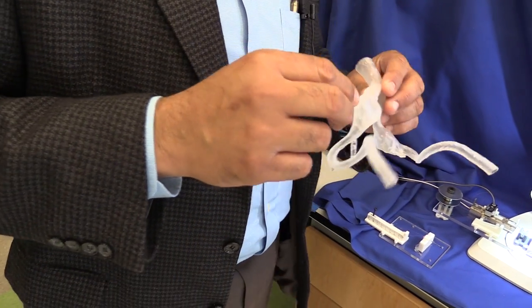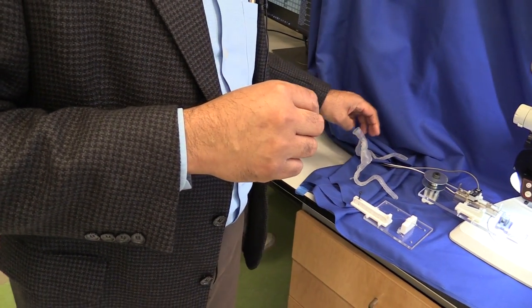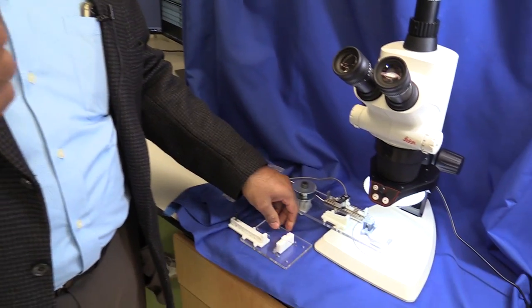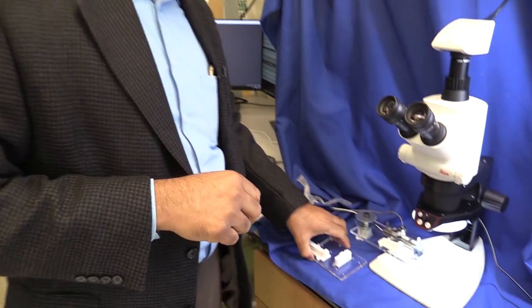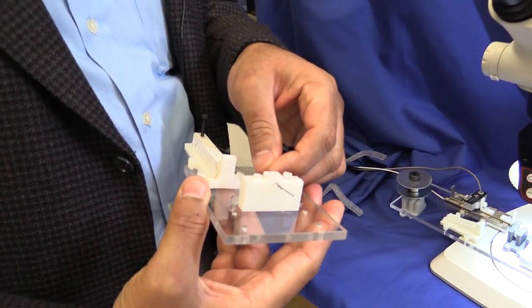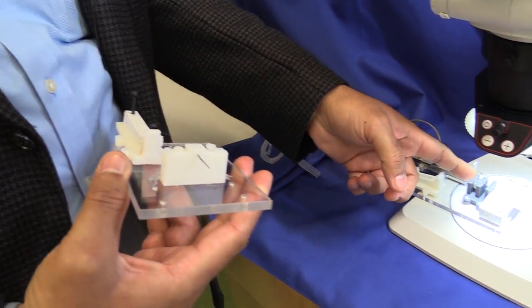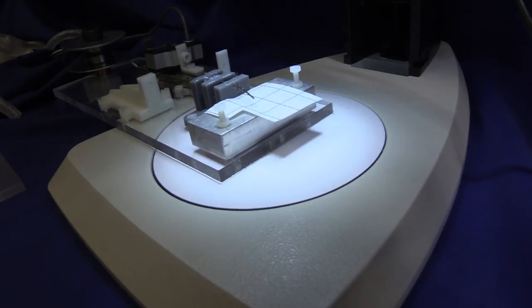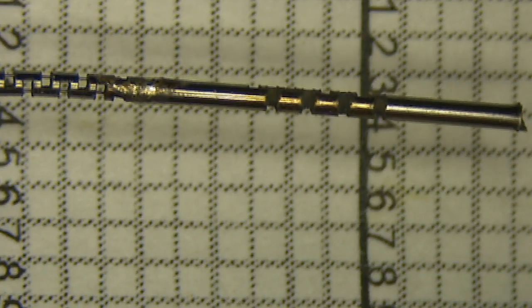A lot of twists and turns, you would say. That's right. That the guide wire has to go through. And what we are interested in essentially is trying to develop a technology where you can steer the end of the guide wire because, as you can see, if you're trying to get a guide wire to a blockage and it comes here, there's no way to get around it. So you want to be able to steer it, get around the blockage. And this is just a very simple illustration here where you can just pull this. And as you can see here, you can see this guide wire prototype, though not the guide wire used in clinic, but it is to scale to demonstrate that concept.